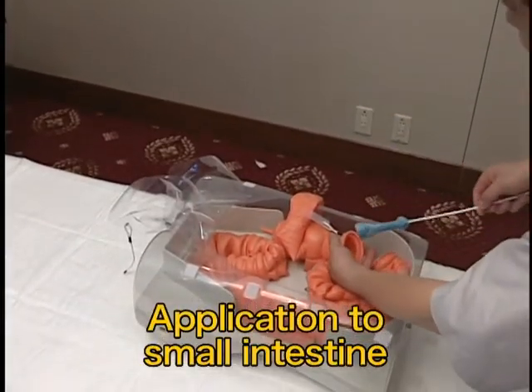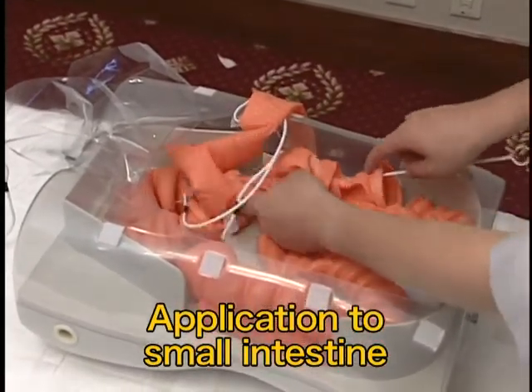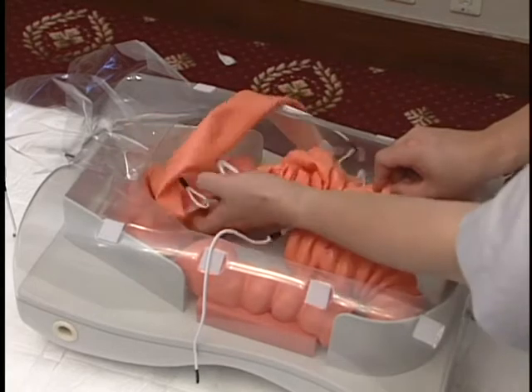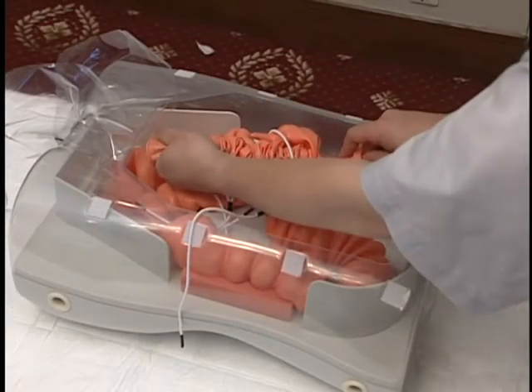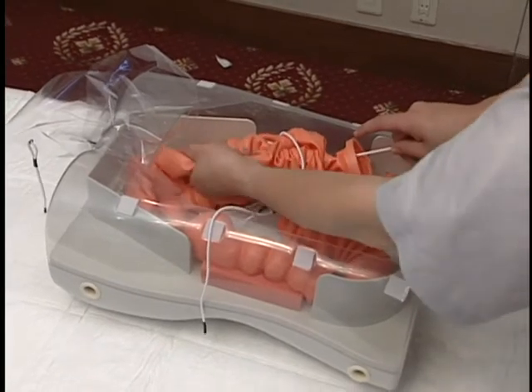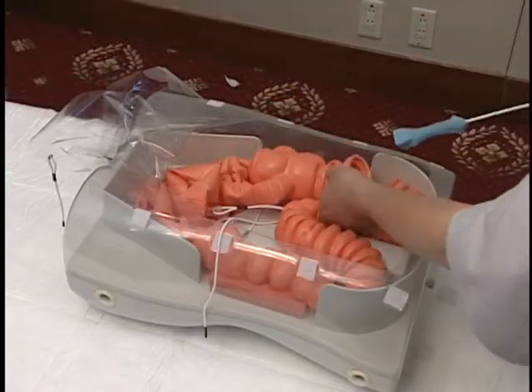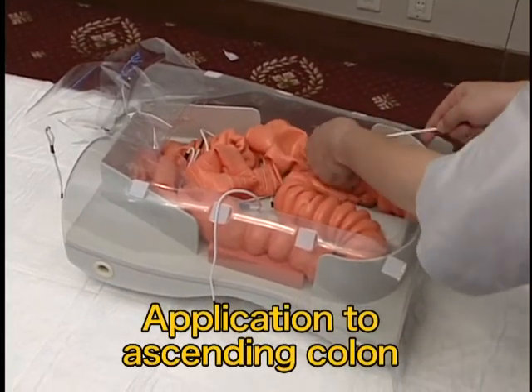Repeat application to the small intestine two to three times so that the lubricating jelly covers the entire intestine. Insert the sponge with lubricating jelly from the ascending colon while shortening the small intestine, to allow the sponge to be advanced far into the small intestine. Insert the sponge all the way to the end of the small intestine. Shorten the intestine and withdraw the sponge little by little while massaging the intestine so that lubricating jelly is spread over the entire small intestine.